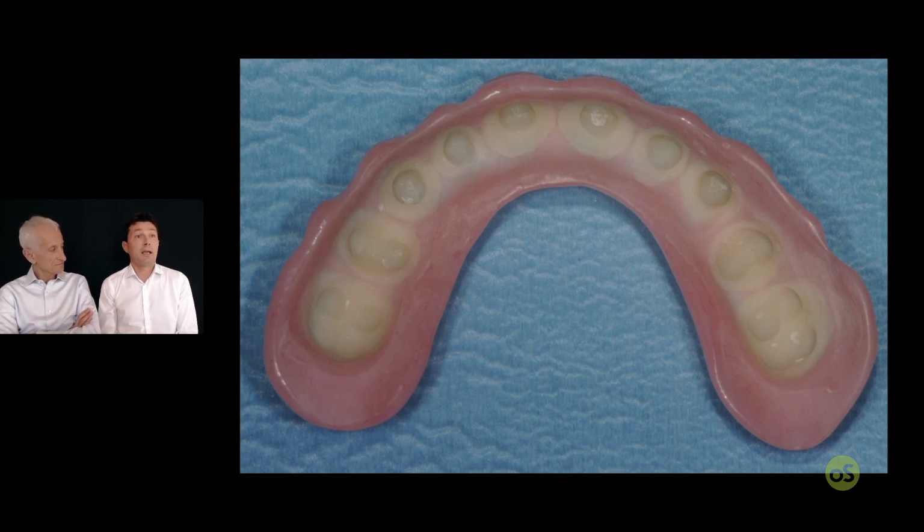With the veneer approach, it is immediately empty, and you don't have to carve the internal surface as you do with the full contour. More or less, if you are more experienced and you have done more cases, then you can save time by using the veneer approach. But for the beginners, it could be a little bit more tricky at the beginning.